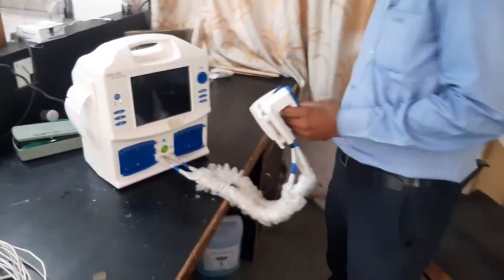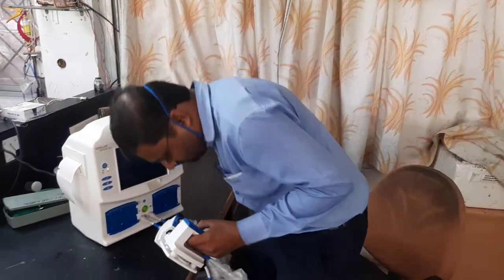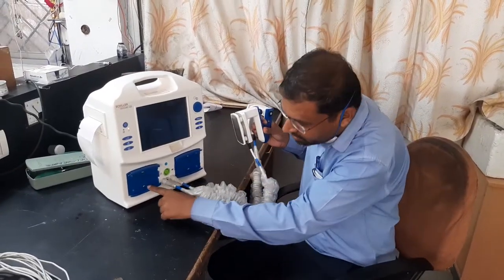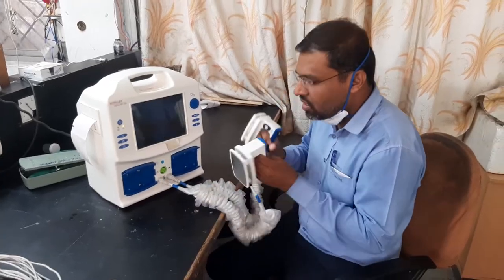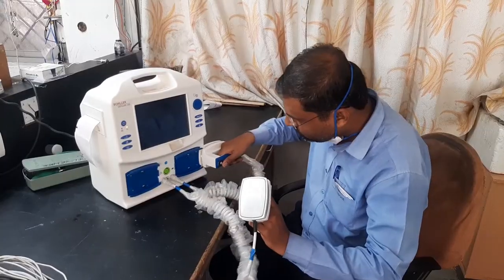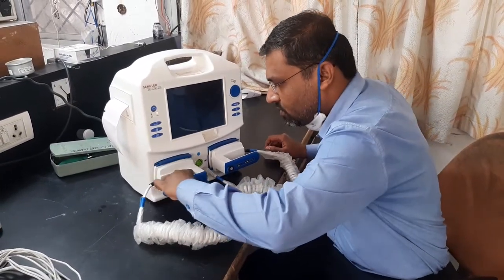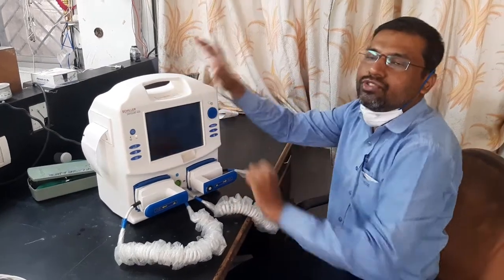What we do to test is charge the defibrillator and then discharge it from these terminals. From where will it get discharged? It will get discharged from these small terminals. To keep the pads in place, you have to insert them properly and smoothly — this is the proper position for insertion.